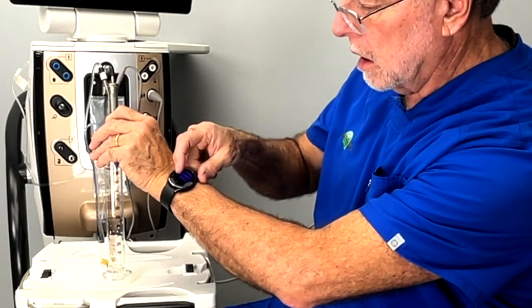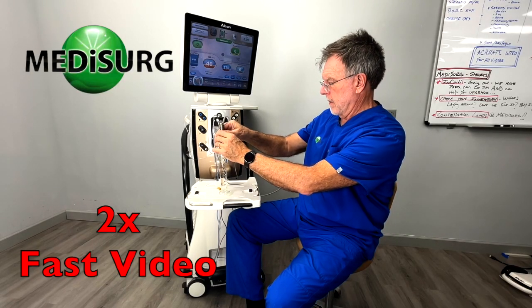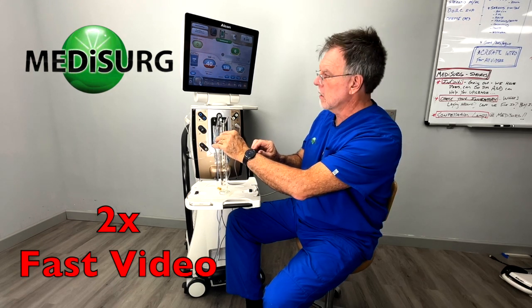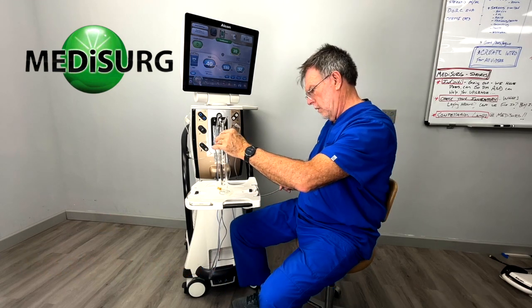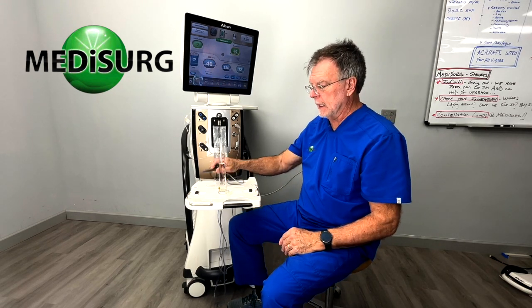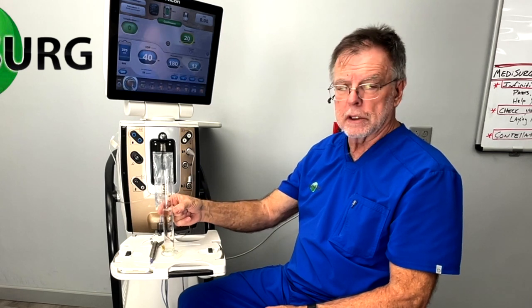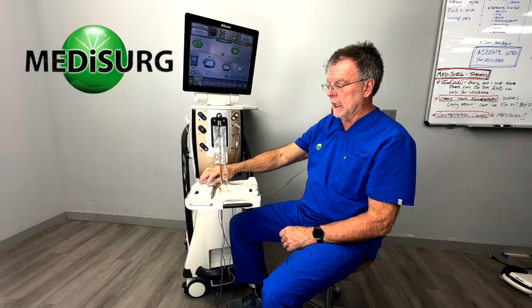Ready to begin the final test. At 30 seconds we can see we have 35 cc's. After one minute, we end up with approximately 73 cc's of fluid flow. That demonstrates that the restriction from the handpiece and the needle tip cap sleeve virtually cut the flow in half each time — we had approximately 130-135 cc's without the tip cap sleeve, and approximately 240 cc's without the handpiece in place.